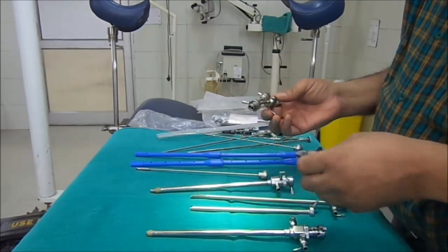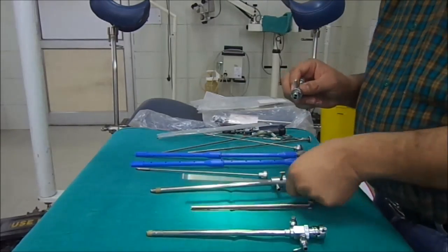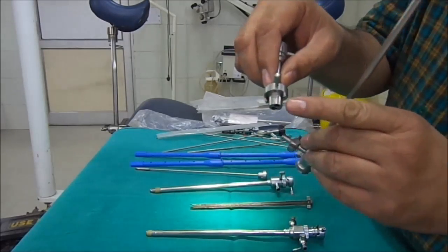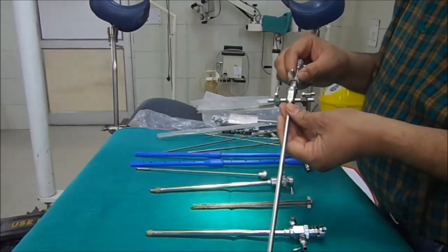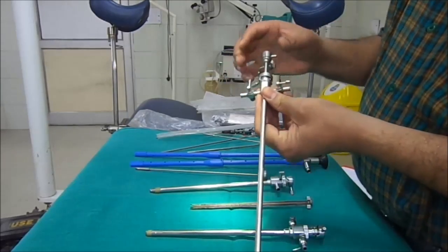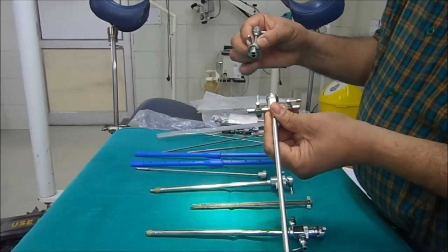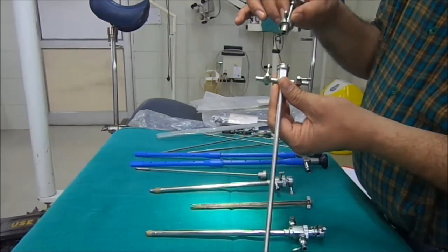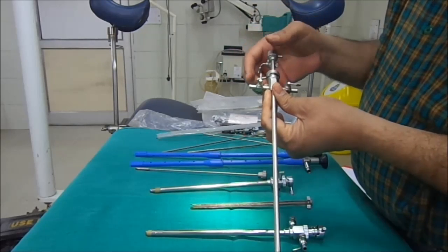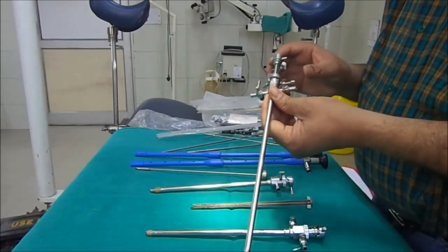After this is the cystoscopic bridge. This bridge is attached to the sheath and is used for diagnostic purposes. For curative or treatment purposes, the working element is fixed to the sheath. You can see that the bridge is attached to the sheath — there is a red point at its anterior aspect. They are aligned and then locked clockwise.